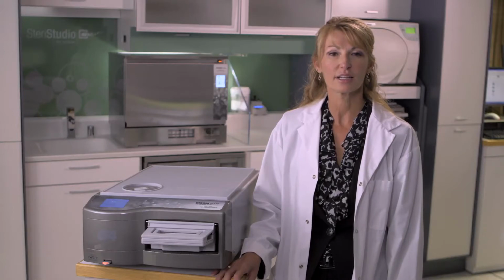You know how helpful previous cycle history can be in diagnosing issues. You and the client can now indicate where you would like previous cycle history to be stored, emailed, or viewed, be it all cycles or only cycle faults. For you, this means simplified troubleshooting because you now quickly and easily access the unit from wherever you are in the country, almost as if you were standing in front of the unit.